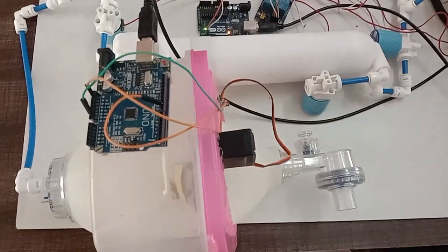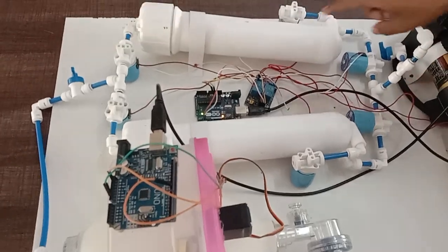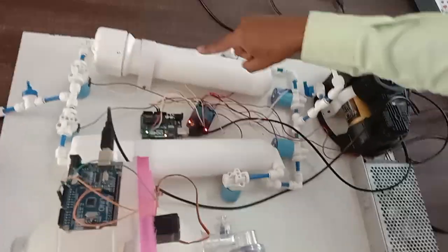As you can see, the nitrogen outlet over here, it was shown. Like this, the cycle will continue and the switching of the cylinder will be taking place.